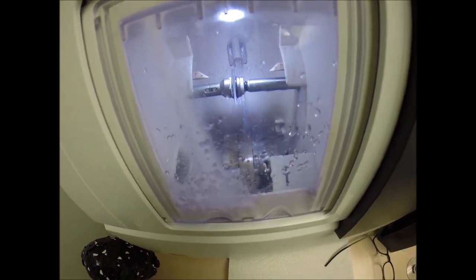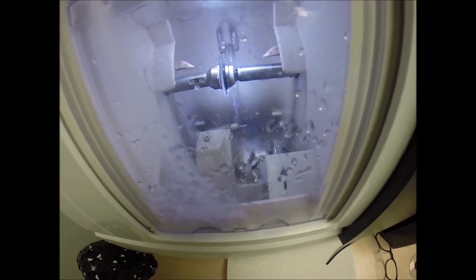So with water spraying, it tells me it's in the last 20 seconds. And just a moment, a lever is going to come out. At the end of that lever is a spinning wheel, something you would find at the end of a Dremel tool. And that's what's getting a super-fine coating to the rear surface of the lens, just to smooth out any portion that's left over from the cutting cycle.